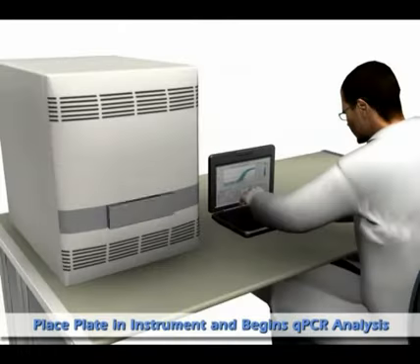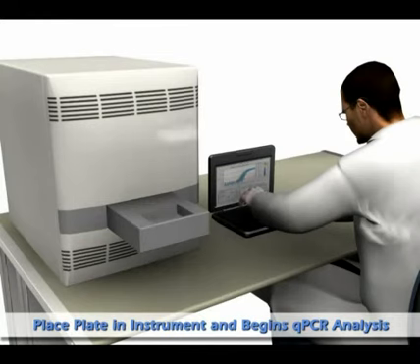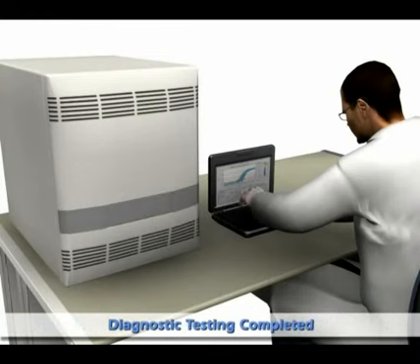Place the reaction plate into a Q-PCR instrument and the molecular testing is soon completed, providing precise diagnostic results.